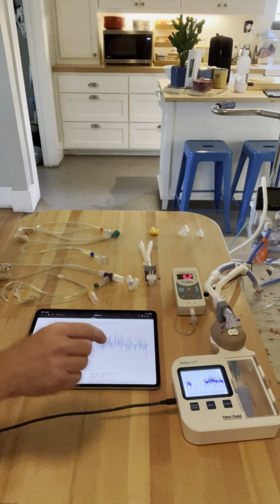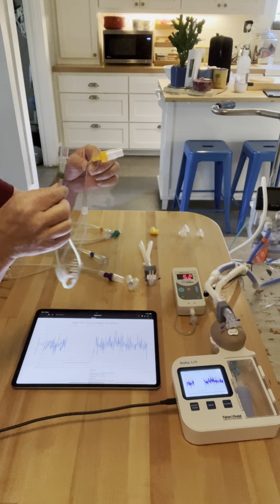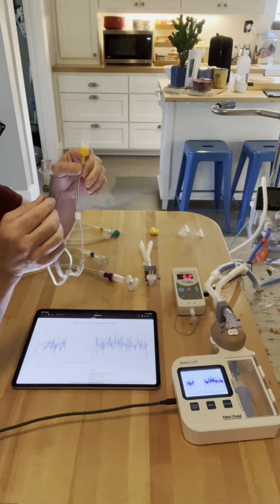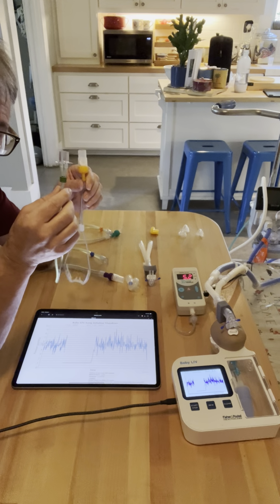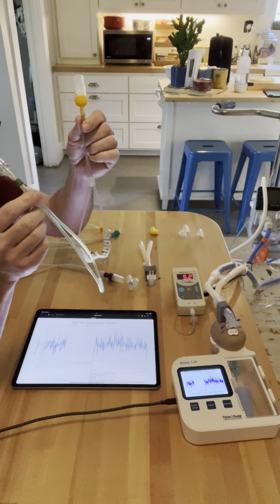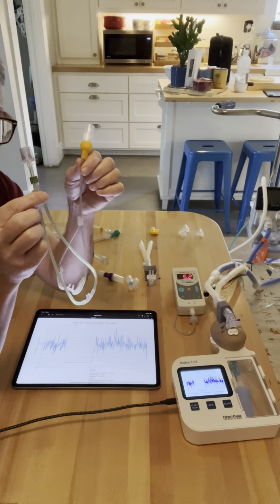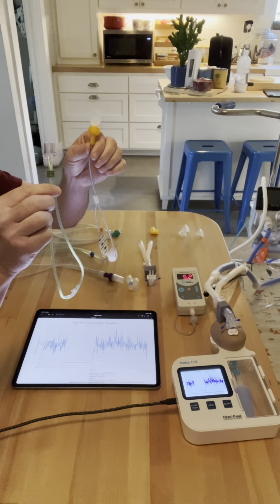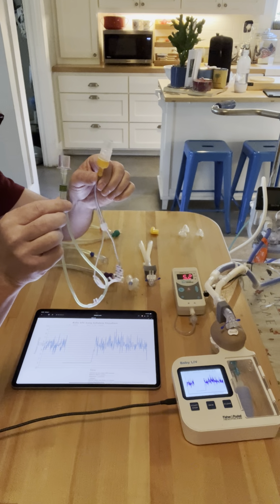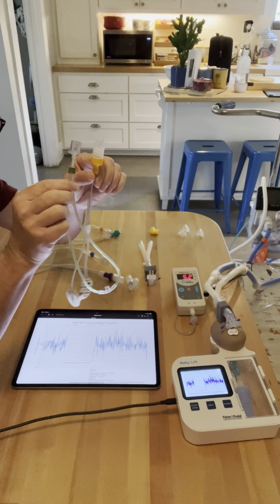All right, so let's go ahead and stop that data. Now I have sized the RAM cannula and the corresponding Optiflow Jr cannula, based strictly on percentage of occlusion in the nares. I didn't look at anything else but just percentage of occlusion in nares. I used the same prong sizes, so the green RAM and the yellow Optiflow are the same size. So we're going to run the test with those side by side.